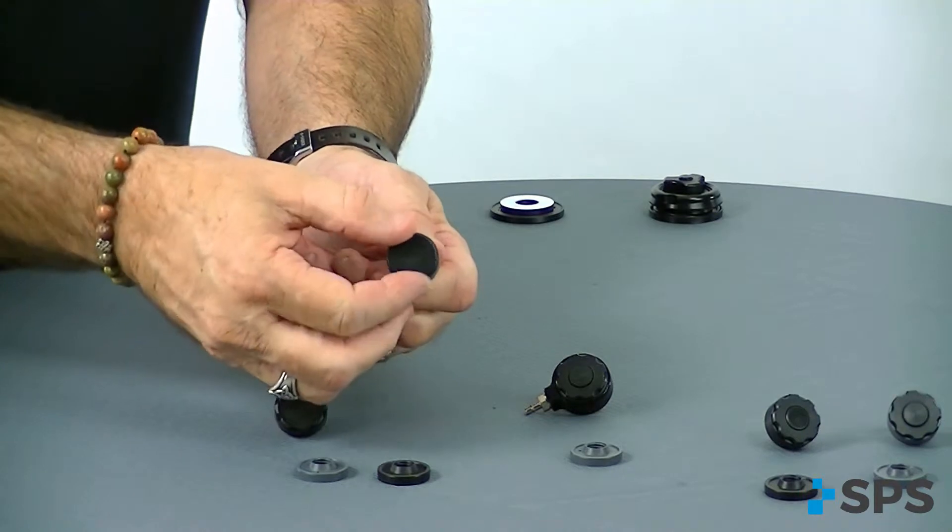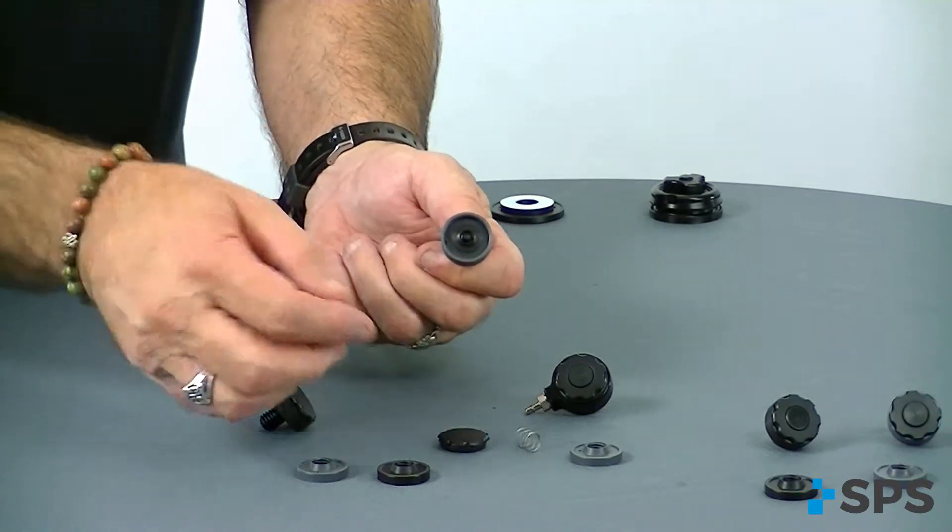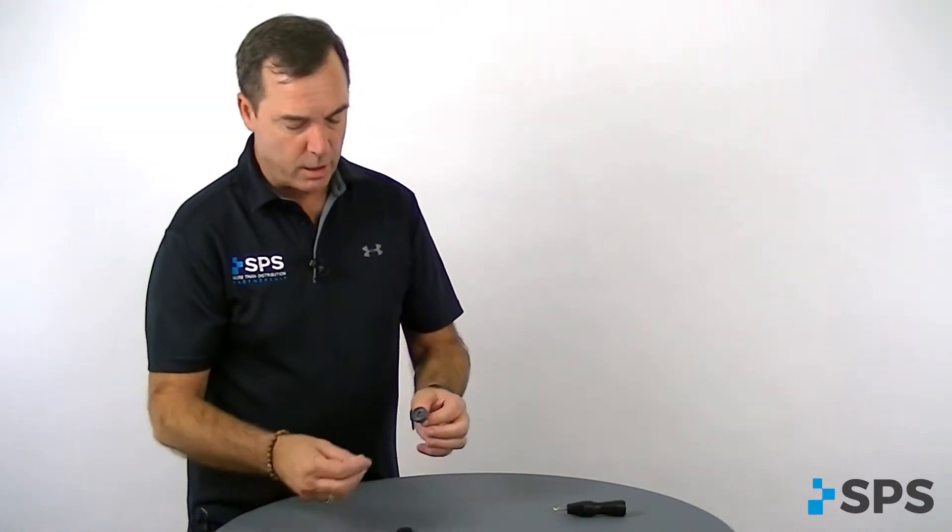You'll see that on some other products. This cap actually screws on and off, and when doing maintenance the cap screws off and you can replace or clean the pieces in warm soapy water and then just reinstall them.